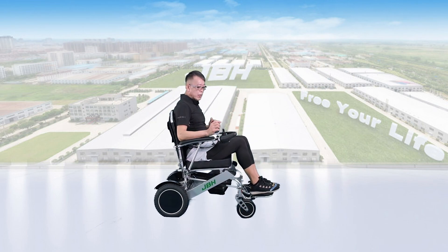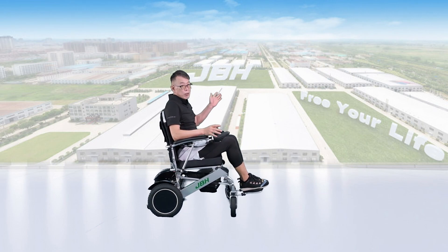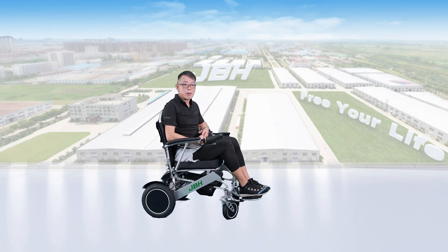Turn the power on, and then you can go straight, backward, to both sides, and also have 360 degrees of movement — no problem at all.